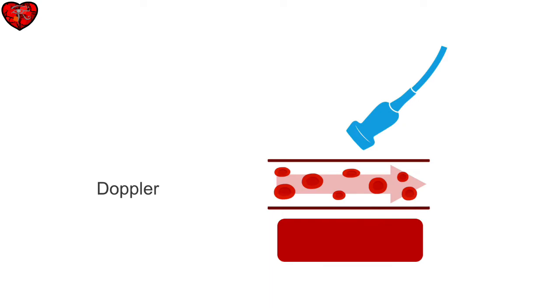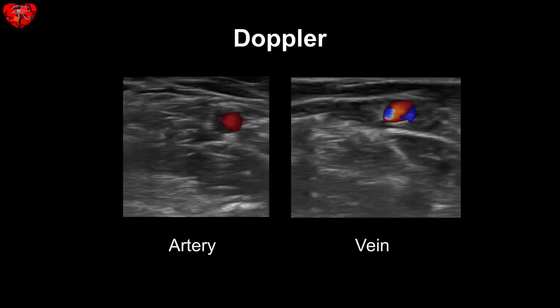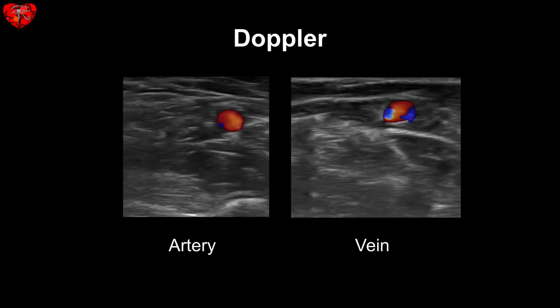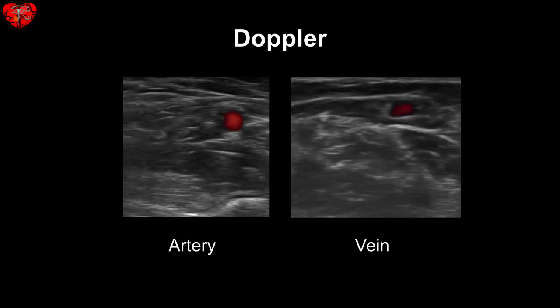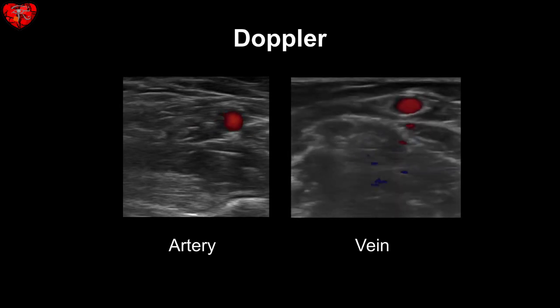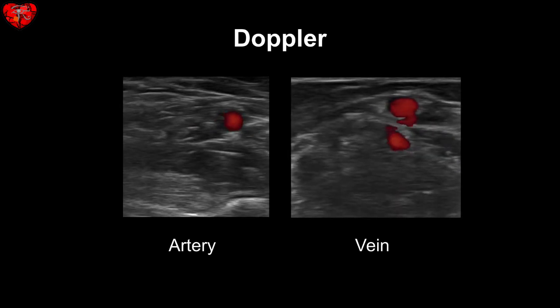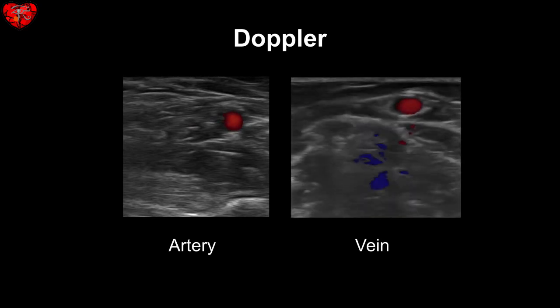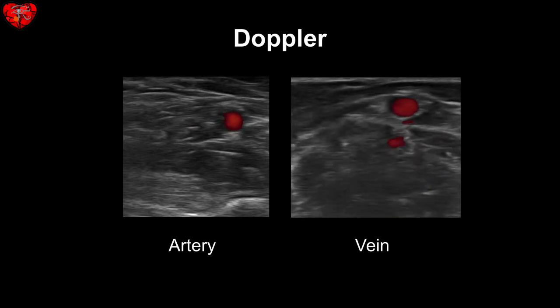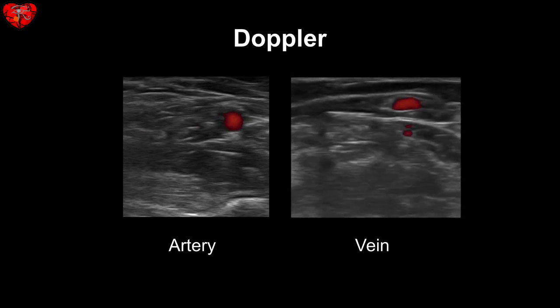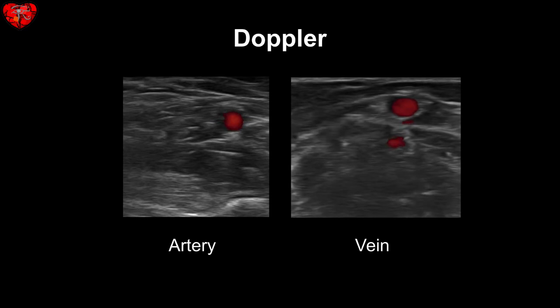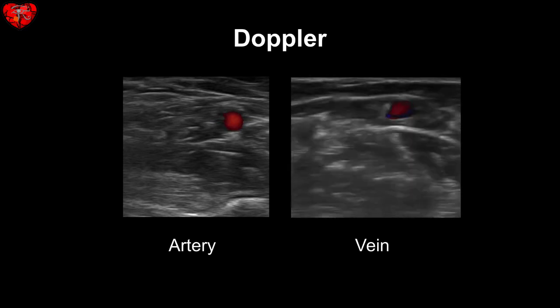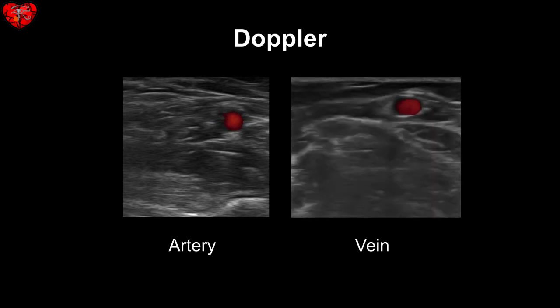Also, you should always point the probe more proximal. Here you see two vessels, but both are red on Doppler. How can that be? If the probe is placed appropriately, the flow seen moving towards the transducer is red, while the flow moving away from the transducer is blue. The operator capturing the picture on the right was not following the convention of angling the probe more proximally. Therefore, this vein looks as if blood within it is flowing towards the probe.